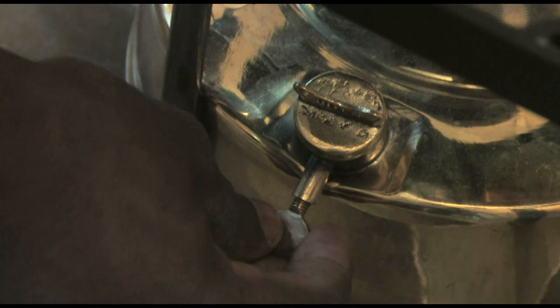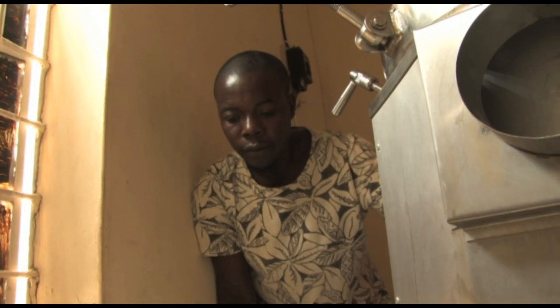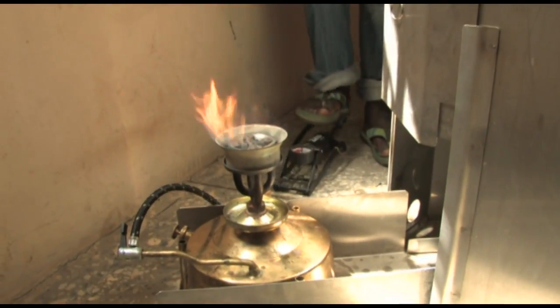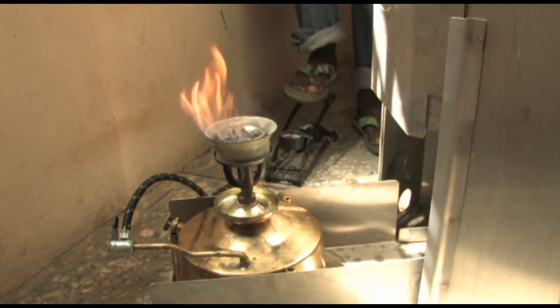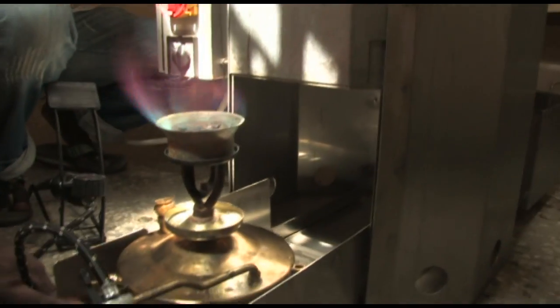To reduce the height of the flame at the burner, loosen the air screw gradually. This releases some pressure and the flame will become smaller. To make the flame bigger, increase the pressure by gentle pumping until the pressure gauge on the pump indicates 3 bar. Do not over pump or the tank can become damaged.